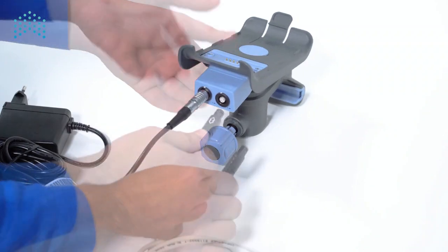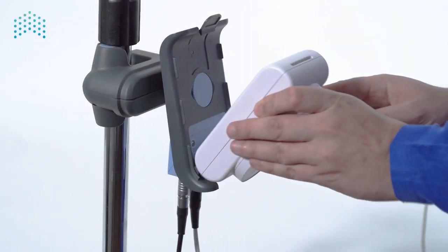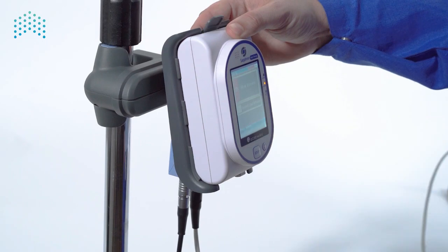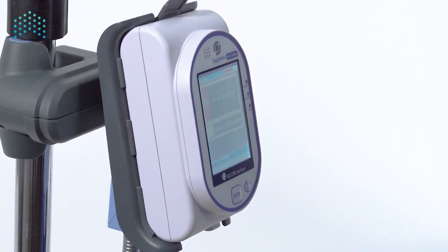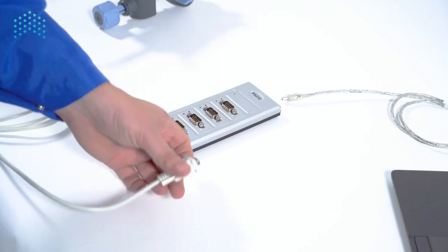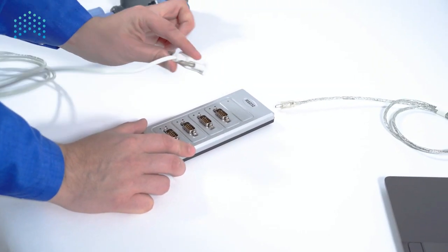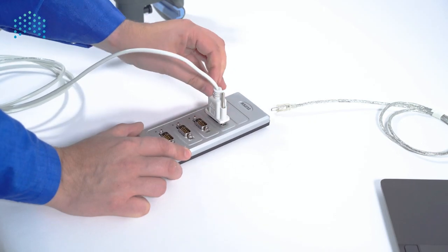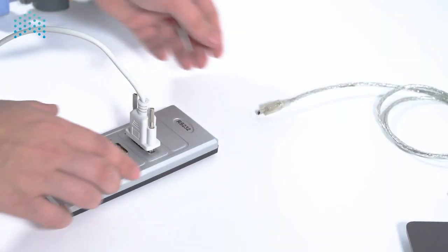First, connect the power supply and communication cable to the splitter and place the pump in the mini-cradle. The pump will turn on; verify that the charge LED is either steady or flashing. Connect the other end of the communication cable to the RS-232 USB to serial adapter, then connect the adapter to the computer via the USB port.